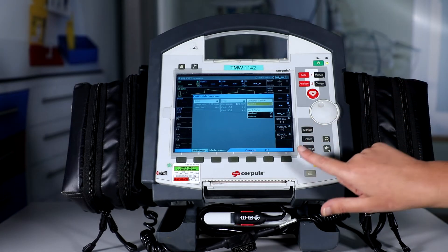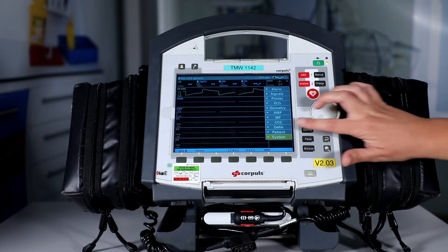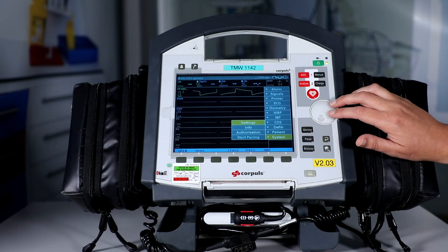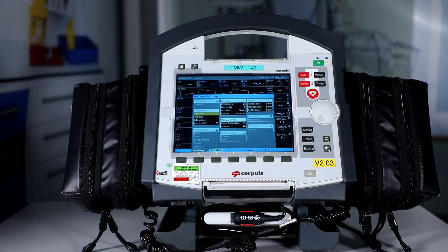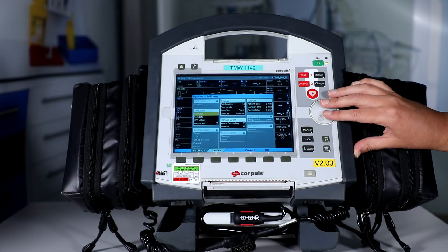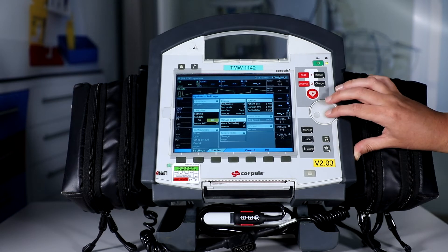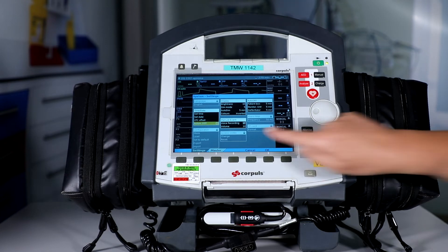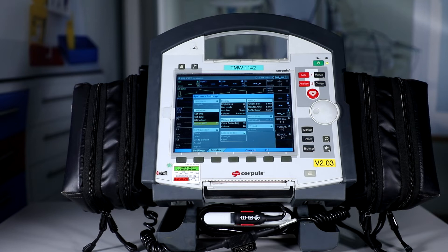Go back into the menu, go down into system, leave the patient screen, click into system, and go into settings. Check that the language group field is set at English. Check the time/date group field is set at Zulu — check that the set time is Zulu, the date is correct, and go into the UTC offset and check that is set to zero. Check that brightness is set at 10, dim mode is at 5, auto-dim is at 5 minutes, and colours are set to inverted.